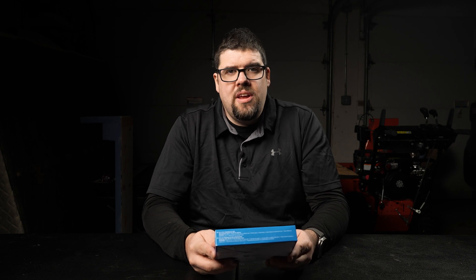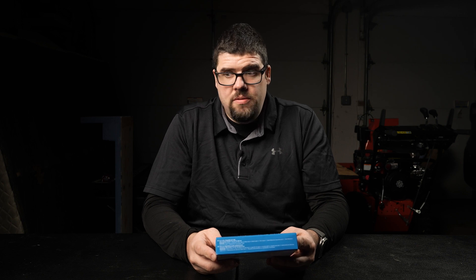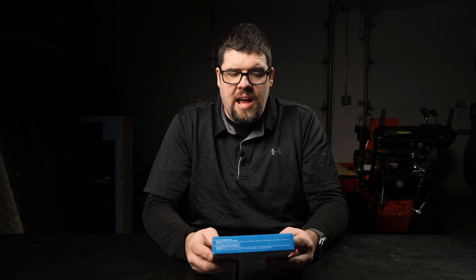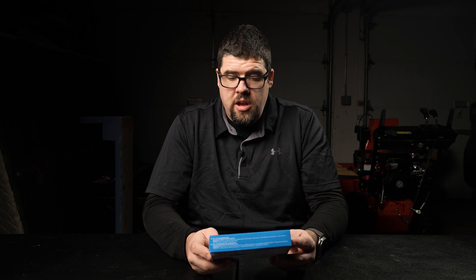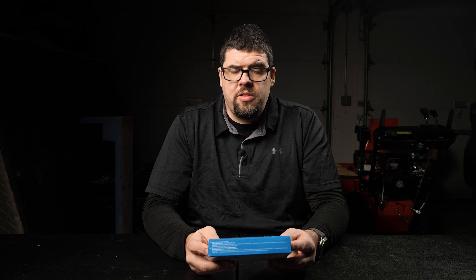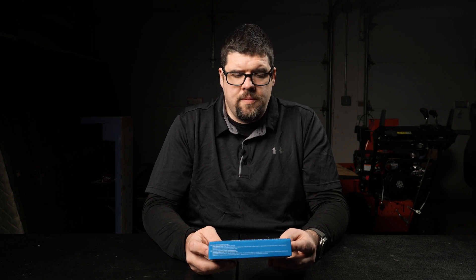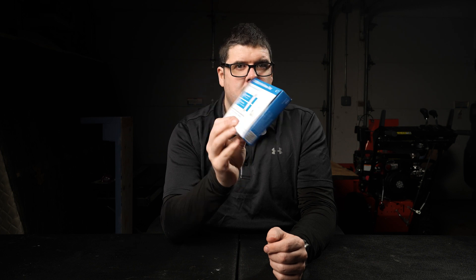Biosensor. This is a COVID-19 at-home test. There are four tests in a kit with rapid results in just 20 minutes or less. I took this earlier today and had the results within minutes — I didn't have to wait 20 minutes to find out I had COVID-19. There is an expiration date on here, so we're all set. This has the FDA emergency use authorization, EUA only. If you got your test through the United States Postal Service, most likely they sent you this.